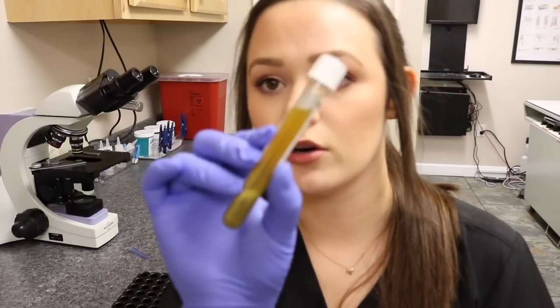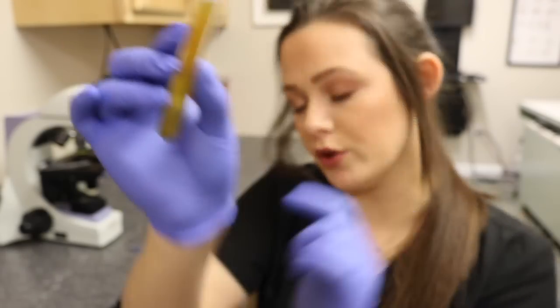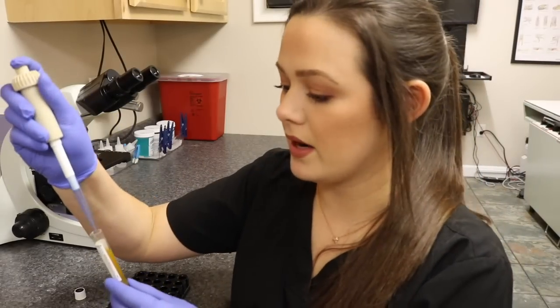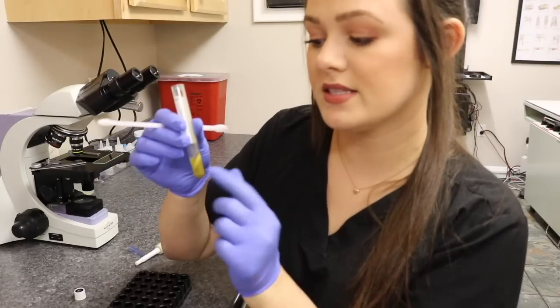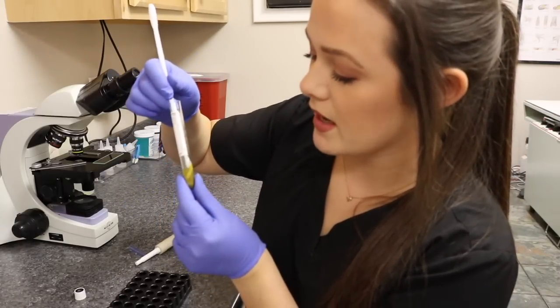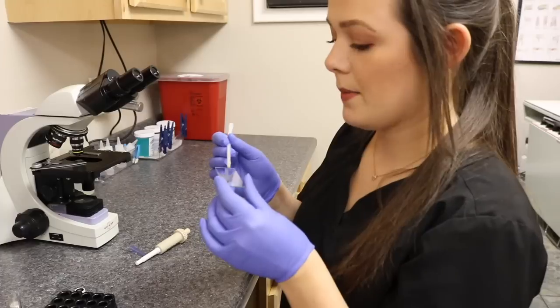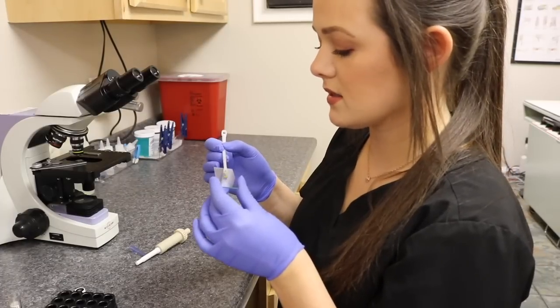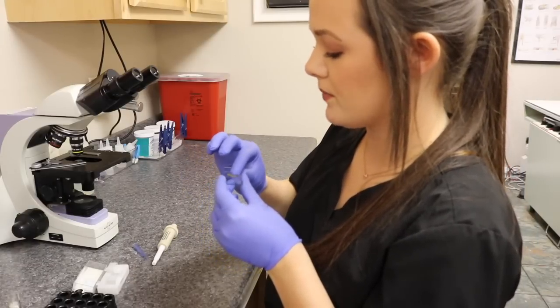Once the solution has spun for 5 minutes it'll look like this. I'm going to take off all the extra fluid — you can either pour it or pipette it out, I'm just going to pipette it out. I've pipetted the extra fluid off without disturbing the sediment at the bottom. I'll take a fecal loop and take the first layer off the sample, place this on a slide, then place a cover slip over the sample, and examine it for parasites.